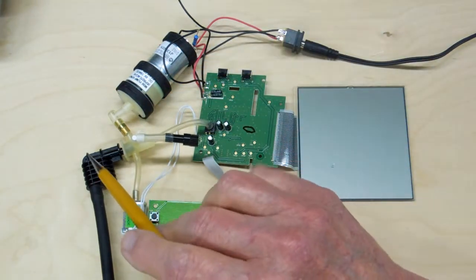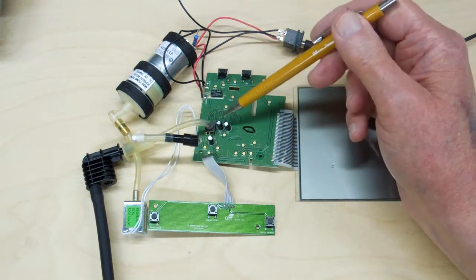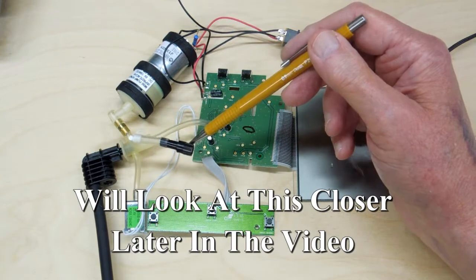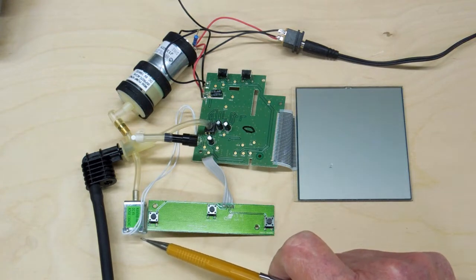This distribution manifold plugs into your pressure cuff. This comes over to this gadget, and one line leads to the sensor on the circuit board. I'm not really sure what this other piece is for — I can't detect any air leaking out of it or anything else.